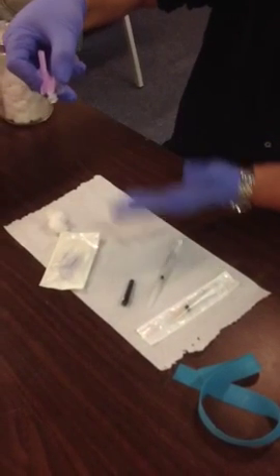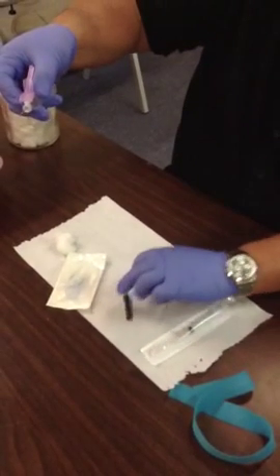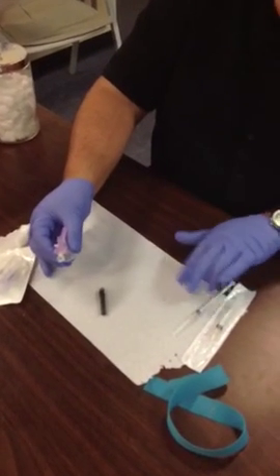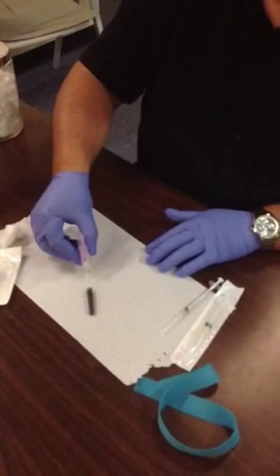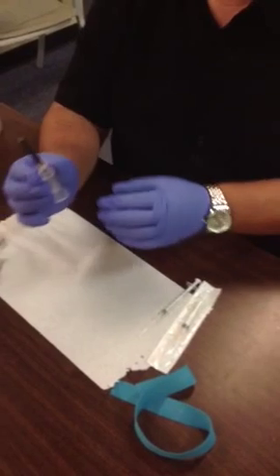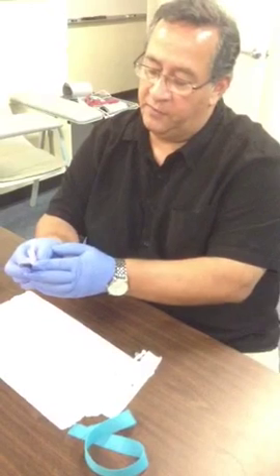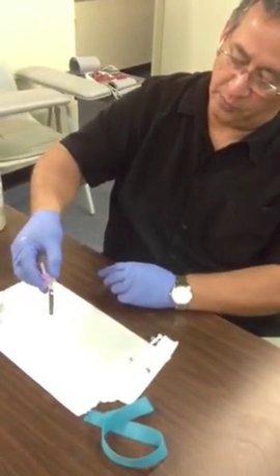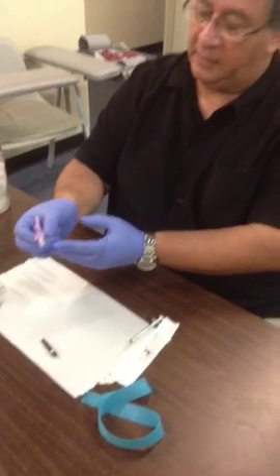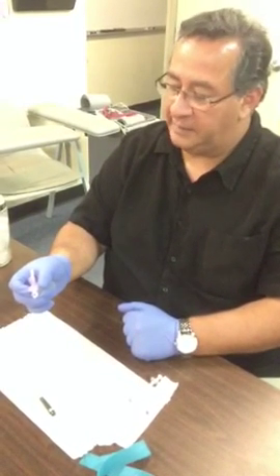I want to see your hands above the table as you loosen that cap off. If you need to recap your needle, we don't use two hands to recap. We simply use what's called a one-handed scoop method — you take the needle and scoop it right inside the cap and lift it up. That will allow you to recap your needle if you need to start over. That's how you take the cap off safely. Notice how I keep my fingers at all times away from the tip of the needle so I don't place my fingers in a position where I can stick myself.